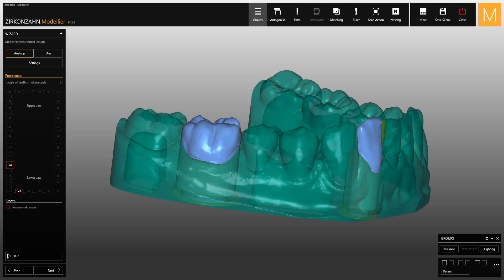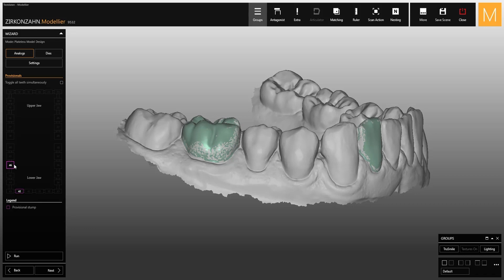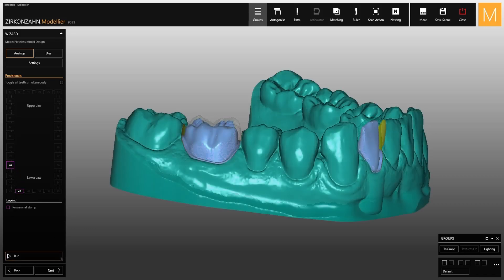In this step, the software will use the anatomies and not the finished parts, so make sure you have modeled the teeth before the final incorporation. If you click a second time on the selected teeth in the menu, they become purple and will be selected as temporary abutments.